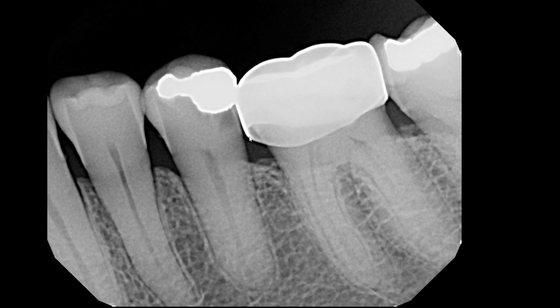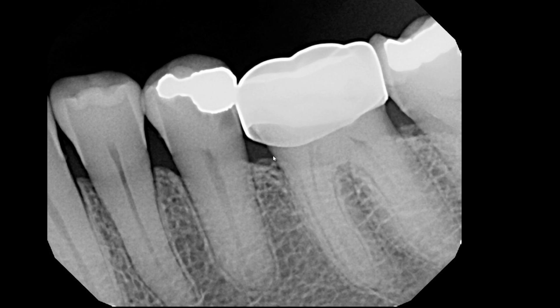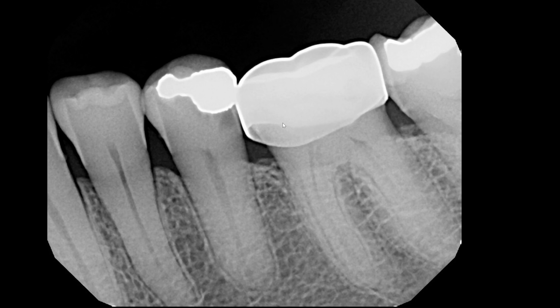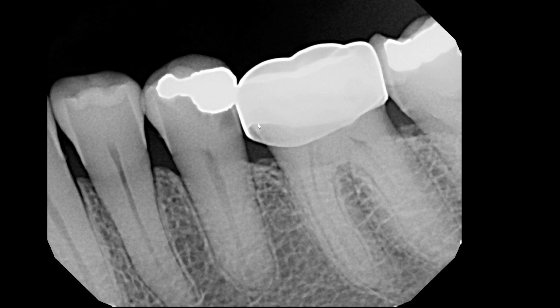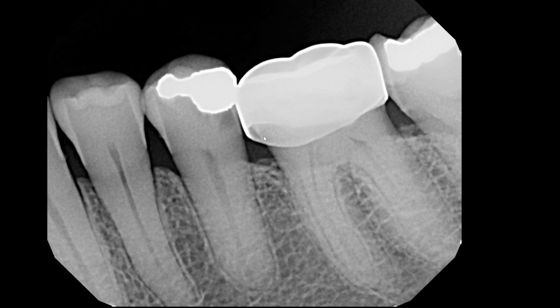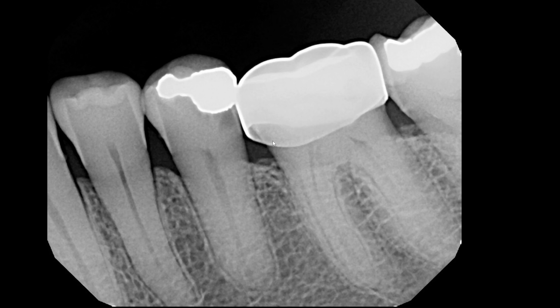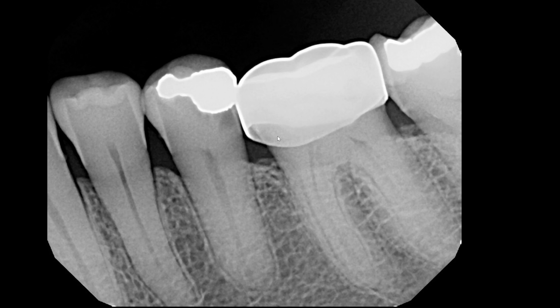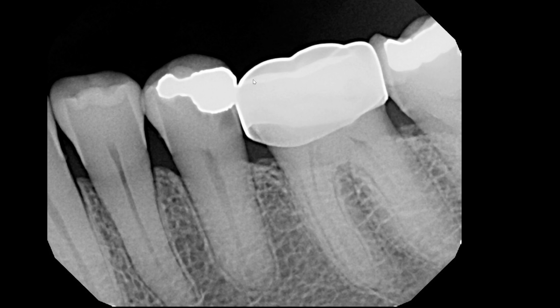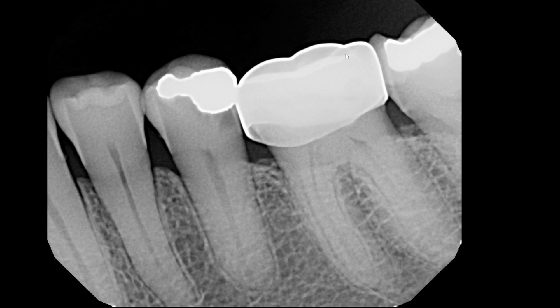If you look toward the cervical area, we can see that the margin of the crown does not adapt to the overall emergence profile or the root surface of the tooth. Additionally, if we look at this portion of the stainless steel crown, you can kind of see through it such that you are able to pick up the natural root anatomic information. So it's not entirely radio-opaque — you can still see some of the underlying anatomic information.